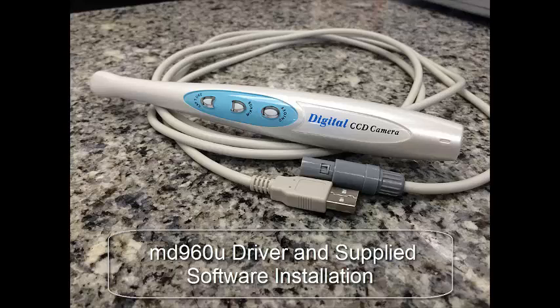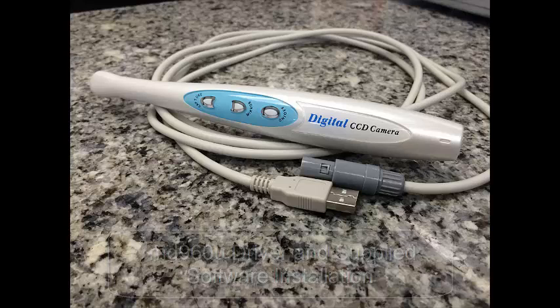When I try to help dentists with camera problems, 95% of the time, it's because this wasn't done correctly.